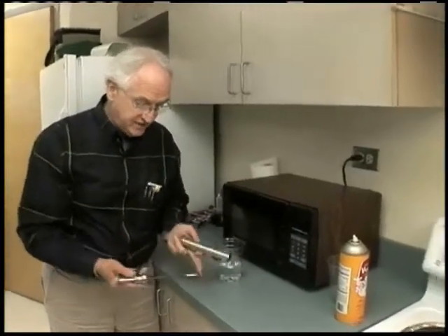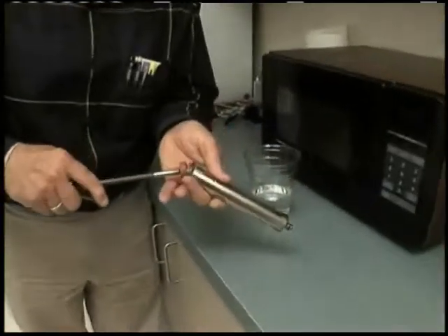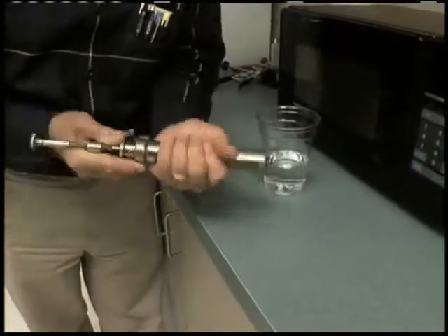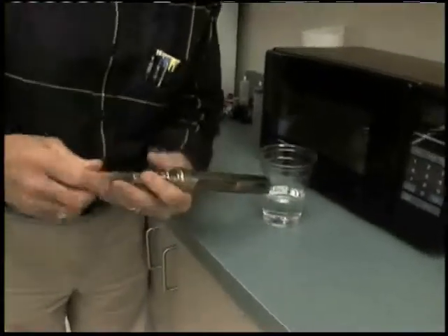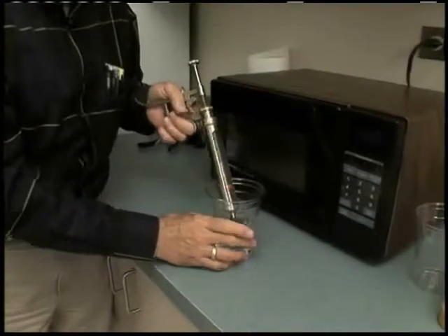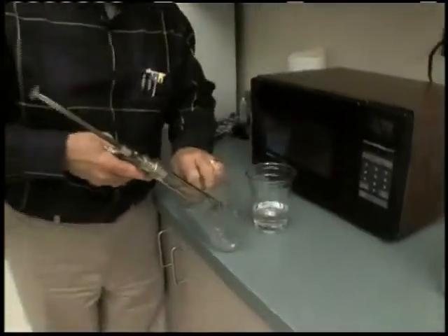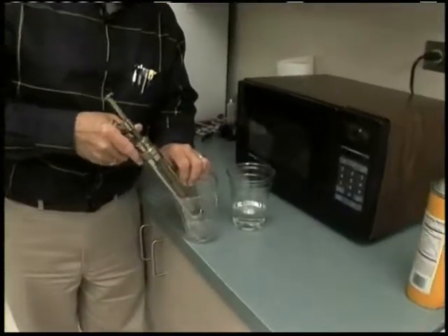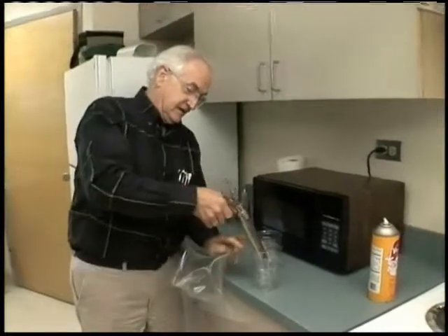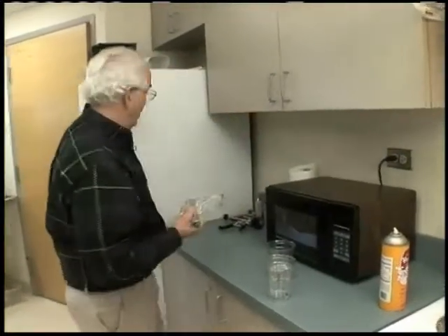Spray-coat the rubber device, then get the syringe back together. It's clean, not perfectly sterile. Slide it back together and tighten up the rubber plunger. Then with boiling water, suck the boiling water back up into the barrel of the syringe and expel it — three times is usually enough. After you've got all the water out of the system, store it in a clean plastic bag and put it in a dust-free cupboard or an ice box that you're not using.